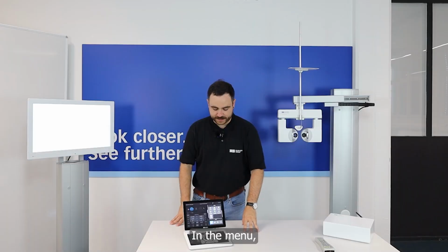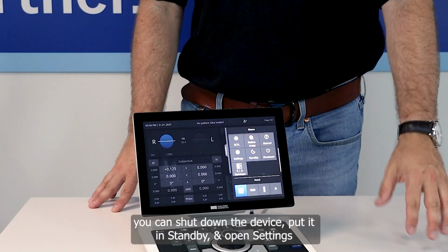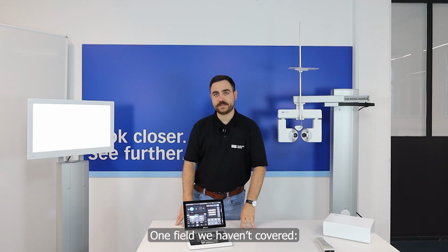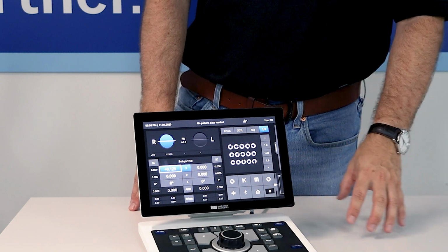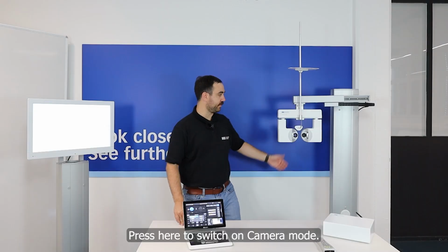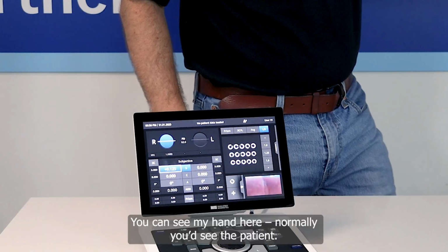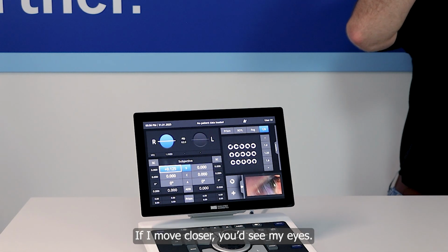And also here in the menu, you can shut down the device, bring it in standby, and make the settings I showed you before. One field we didn't discover yet is a really, really nice feature, in my opinion. If I press here, a camera mode will switch on. So now it activates a camera. You can see my hand here, but if there will be a patient, I can show you. Now you would see my eyes.